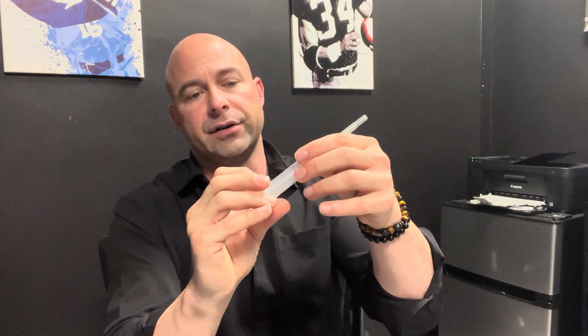The first thing you're going to do is pop the caps off. You don't necessarily need to wipe these down with alcohol right out of the gate — some people are OCD about it, but the cap has been on there and it's already clean. Just don't touch the top. Go ahead and open your syringe.